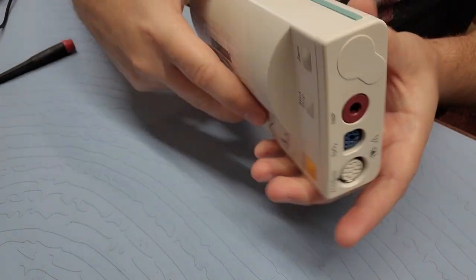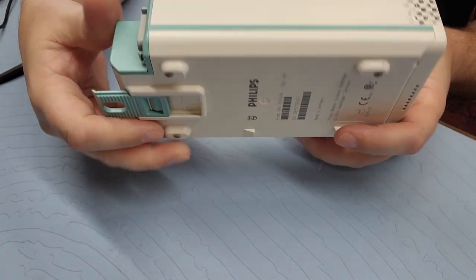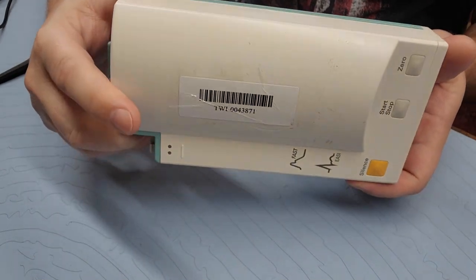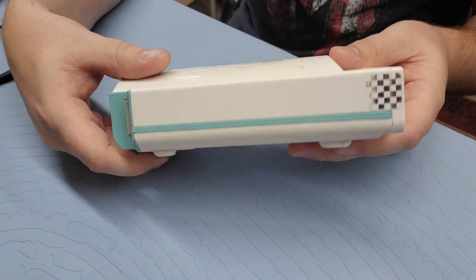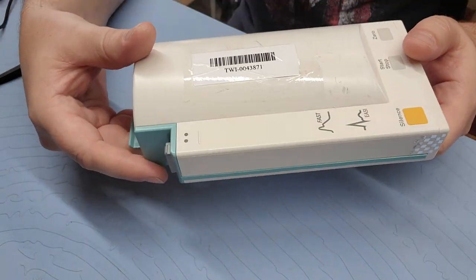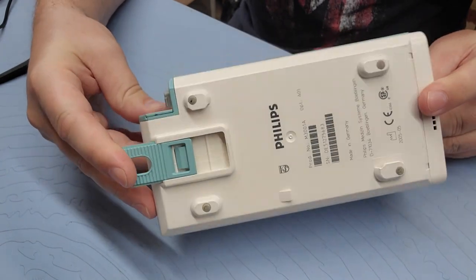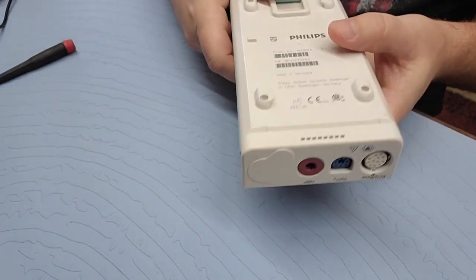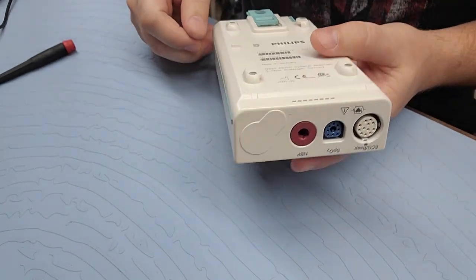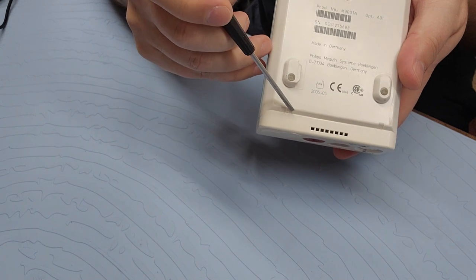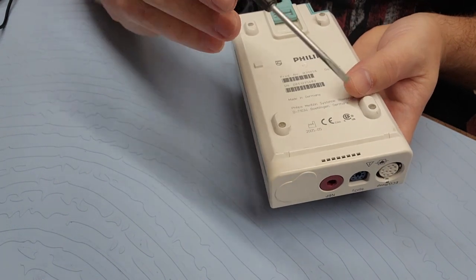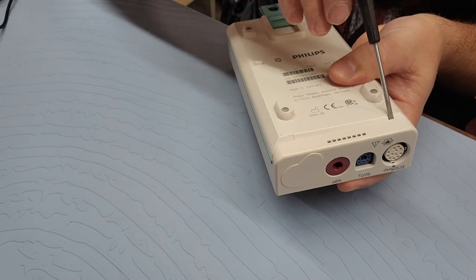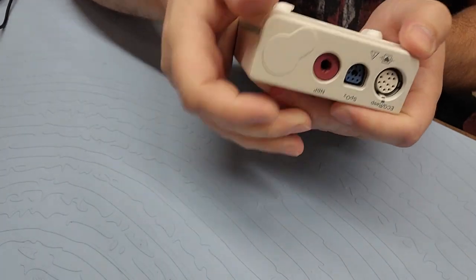So let's go ahead and take this guy apart. If you notice, there are no external fasteners on this. Philips has a very fascinating design engineer. The build quality is just there. And the way you get this apart is right down here at the faceplate, there are two little notches. I take a small flat blade screwdriver and just kind of pop it in there and just rock it back and forth a little bit.